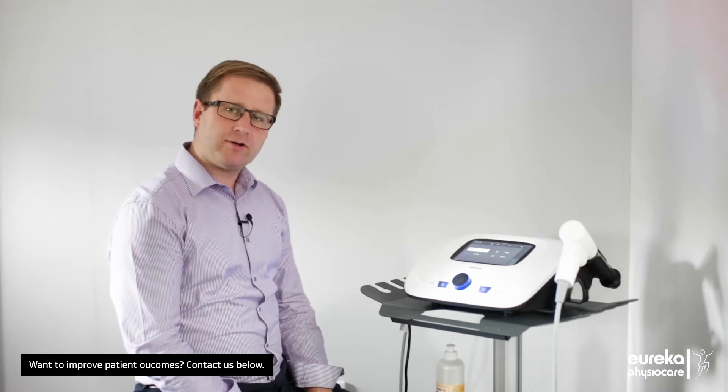Welcome to the A-Star Impactus M Plus Shockwave unit. I just wanted to run over some of the key features and benefits of this product and how it could help you in your clinic.